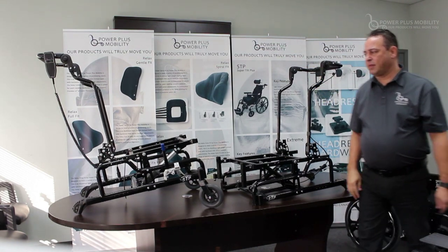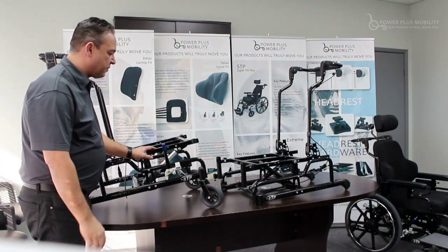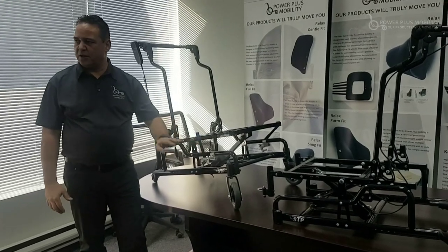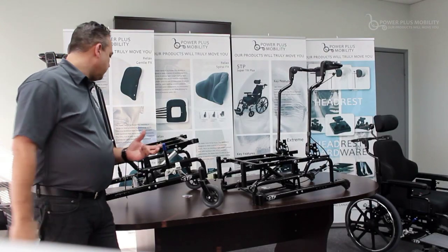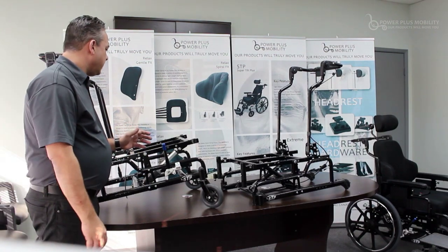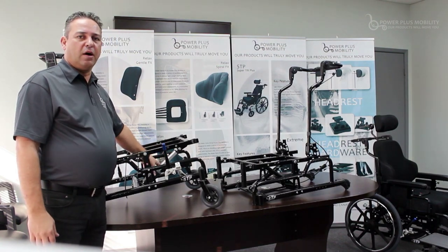The second type of frame that we have is a power tilt option frame, and it's constructed a little differently. The bottom frame is identical to the STP frame — it is a universal frame that we use throughout our facility. But the upper frame assembly is just a little different. We have welded mounts, which accommodate for this single power tilt option here.